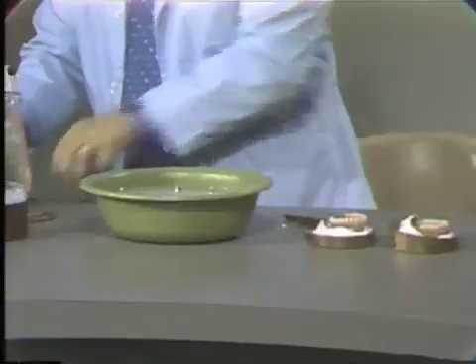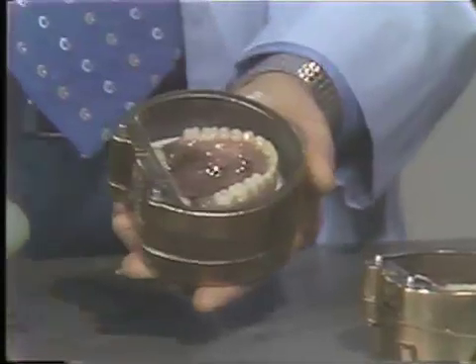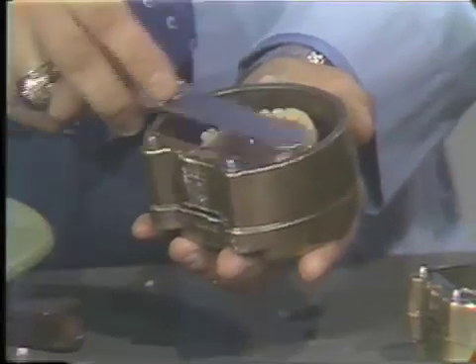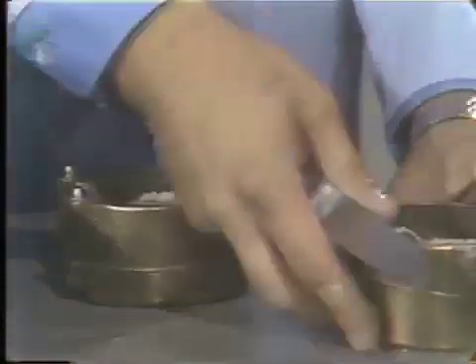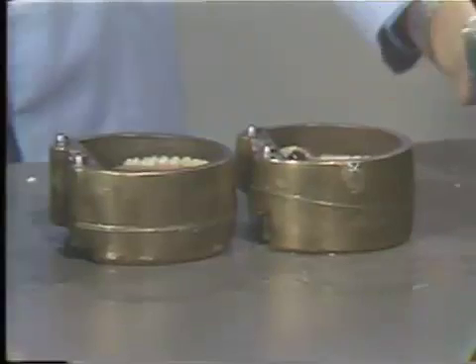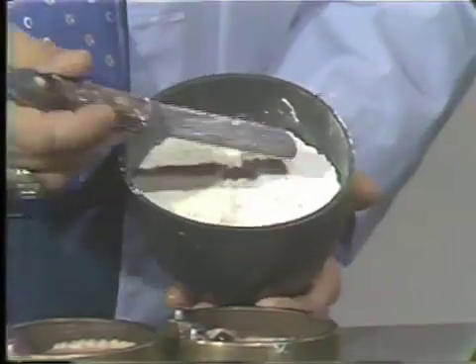At this point, we will assemble the second half of our flask. Now it is most important that the teeth do not protrude above the top of the flask. If they were to go above the top of the flask, we would have to remove the cast and start over again, particularly if your model is quite thick. Our mandibular model will look like this. Into this, we will be making our second pour, using one half stone and one half model plaster.